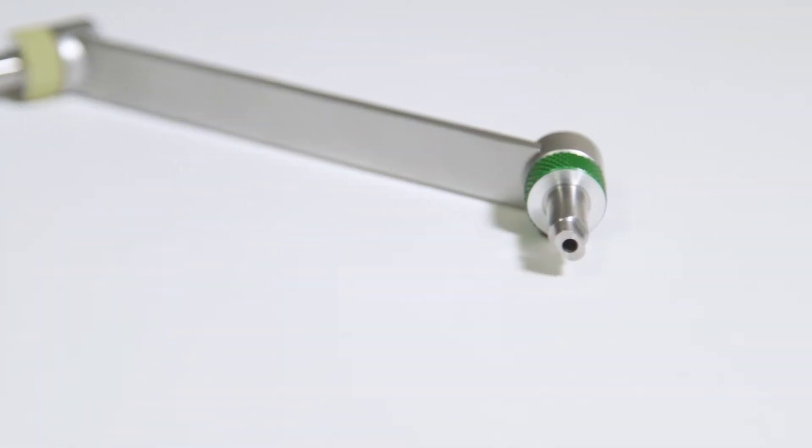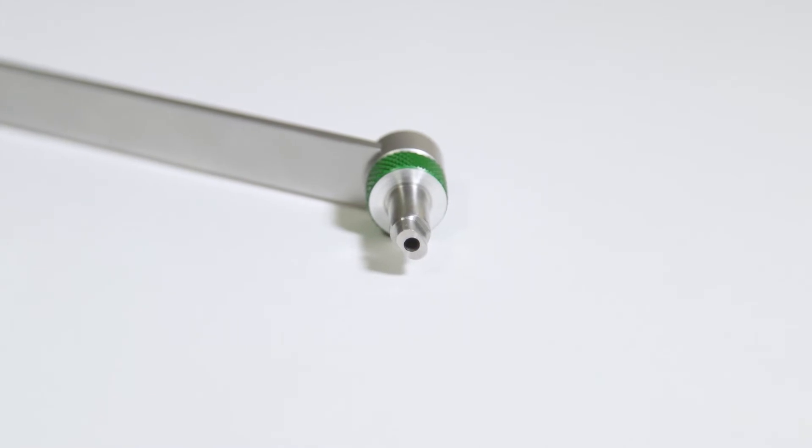The other end is for neutral positioning of the screw in the centre of the plate hole.